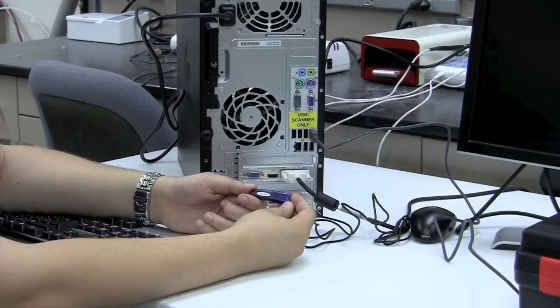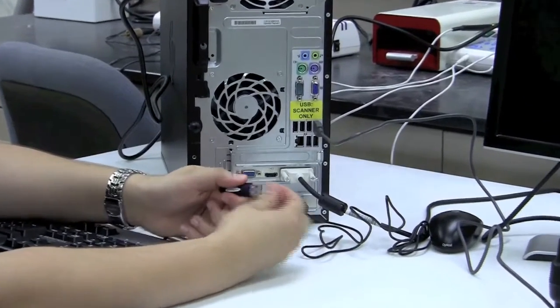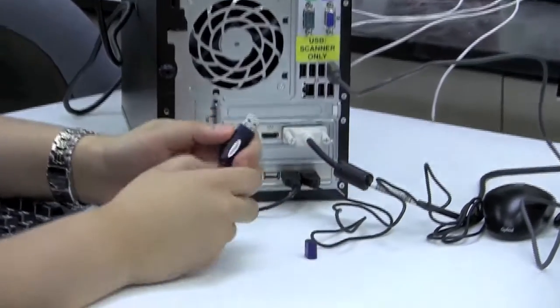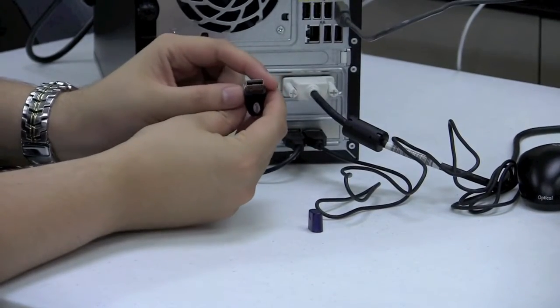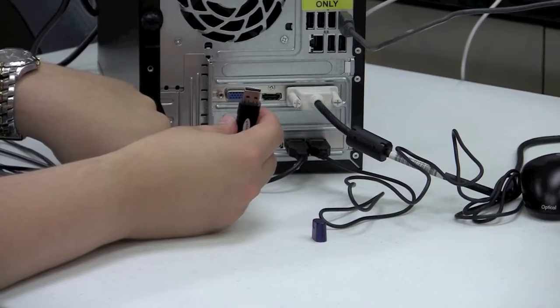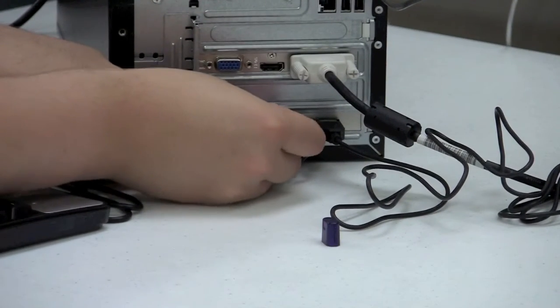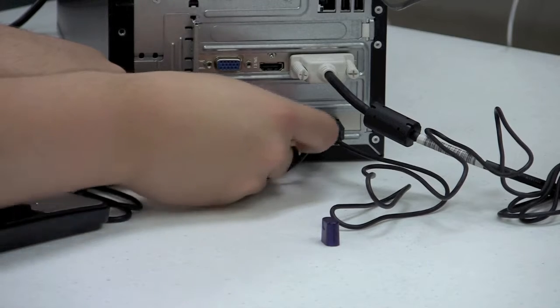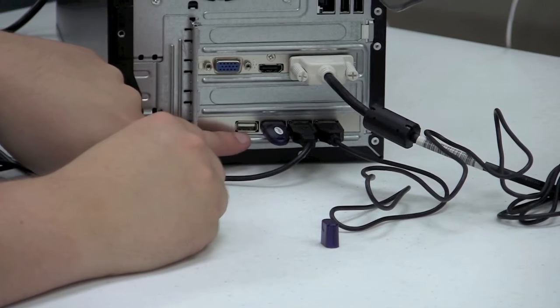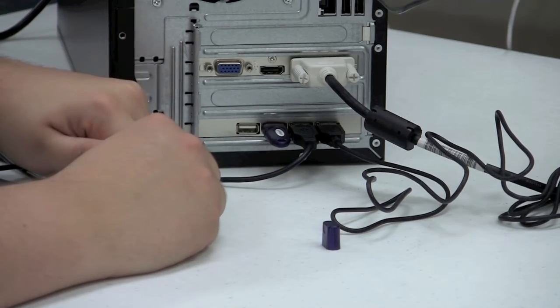Take the 3Shape dongle out of the calibration kit and remove the top from the USB key — just pull it right off. Just like a USB thumb drive, plug it into one of the peripheral device ports on the bottom of the computer tower. Make sure you plug this into the back so you avoid bumping into the dongle or knocking it off during normal operation.